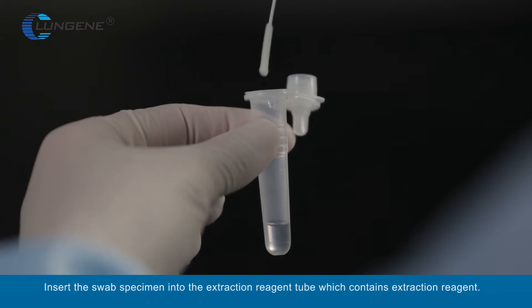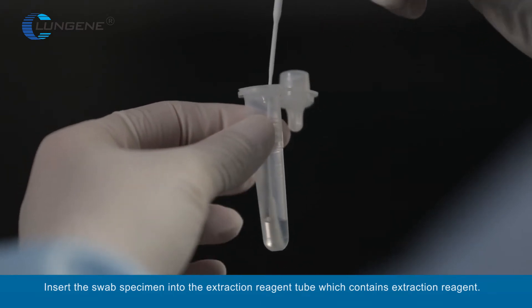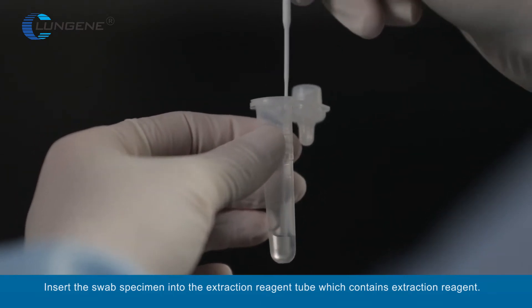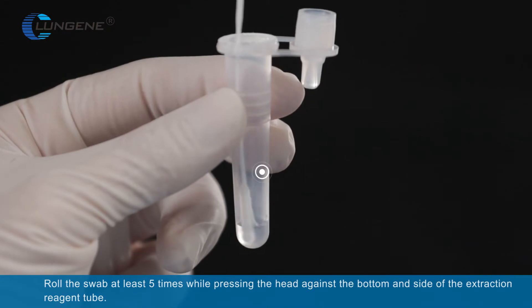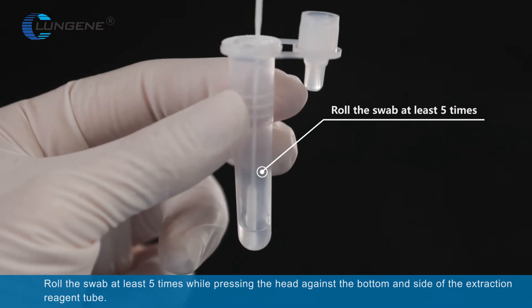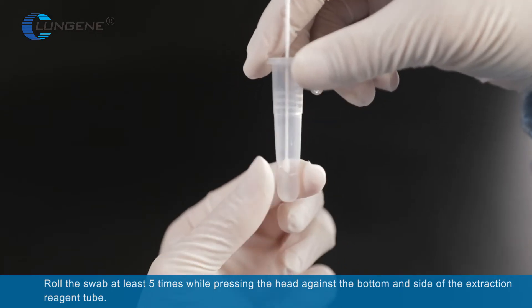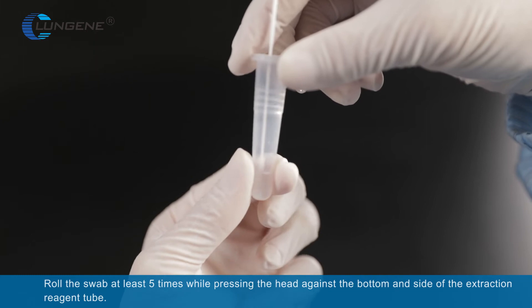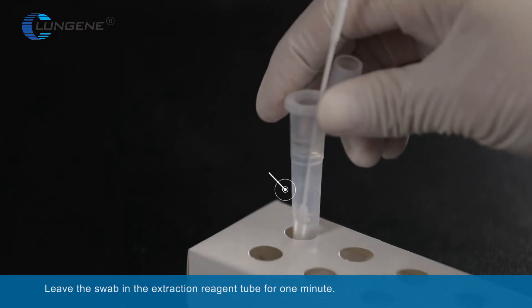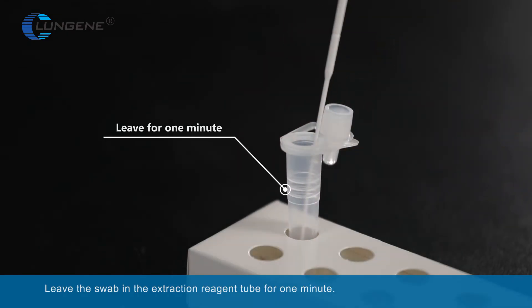Insert the swab specimen into the extraction tube which contains extraction reagent. Roll the swab at least 5 times while pressing the head against the bottom and side of the extraction tube. Leave the swab in the extraction tube for 1 minute.